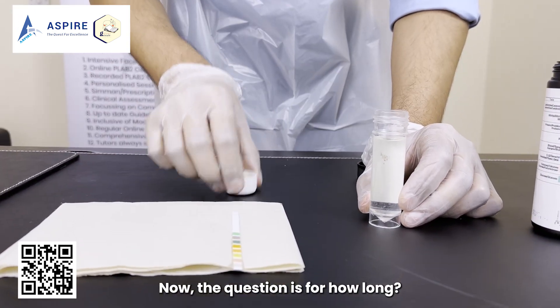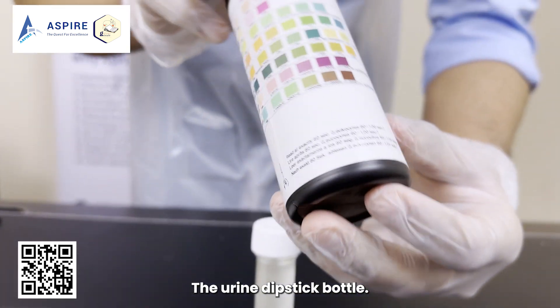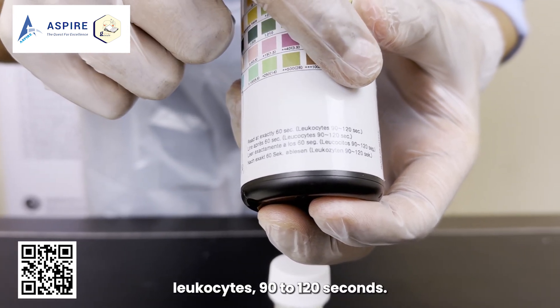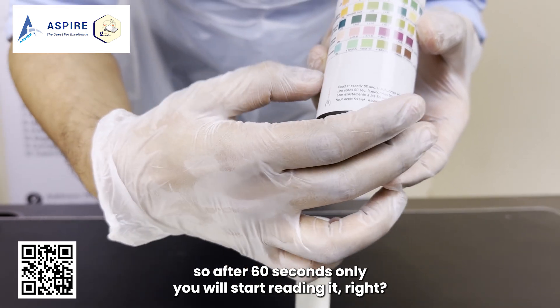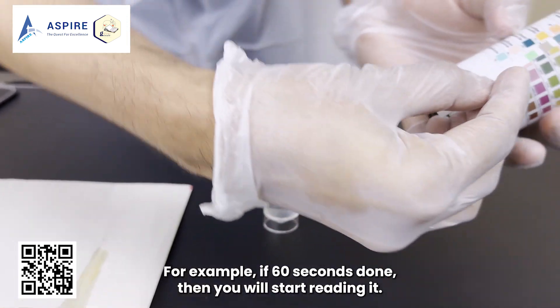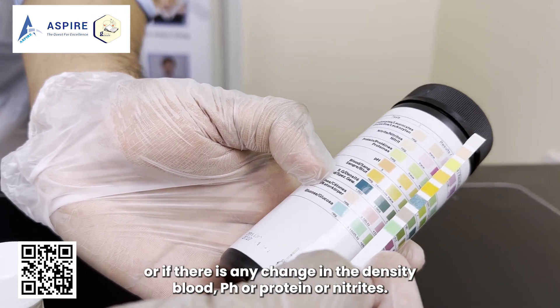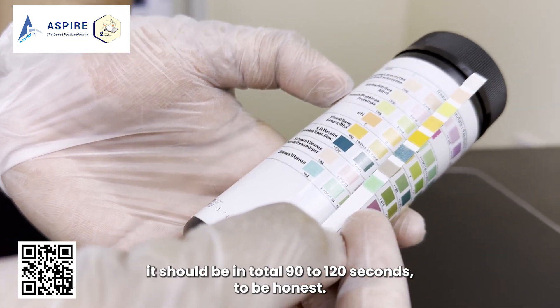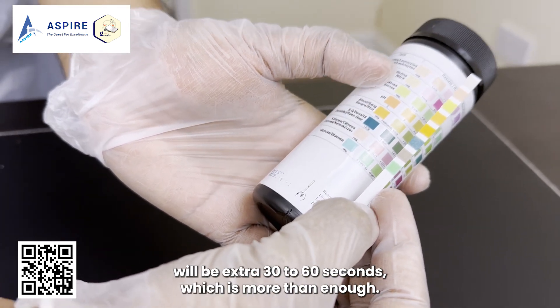The question is: how long do we wait? The answer is on the urine dipstick bottle — read at exactly 60 seconds; leukocytes at 90 to 120 seconds. So if you have been given a watch or clock, after 60 seconds you start reading. Start reading from the bottom — glucose, ketones, density, blood, pH, protein, nitrites. By the time you reach leukocytes, the extra 30 to 60 seconds will be enough, totalling 90 to 120 seconds.